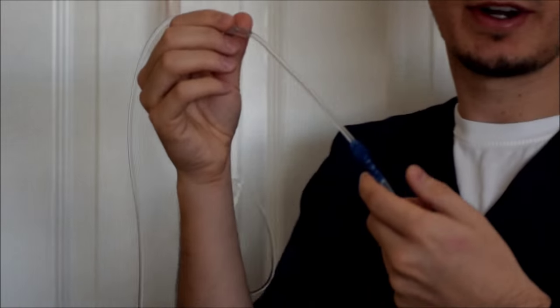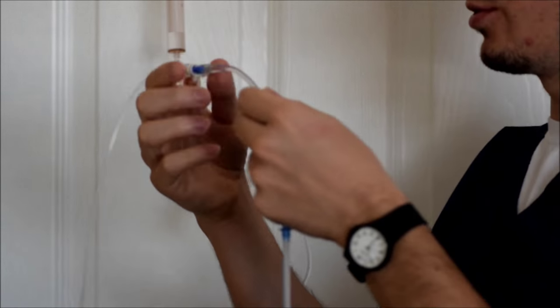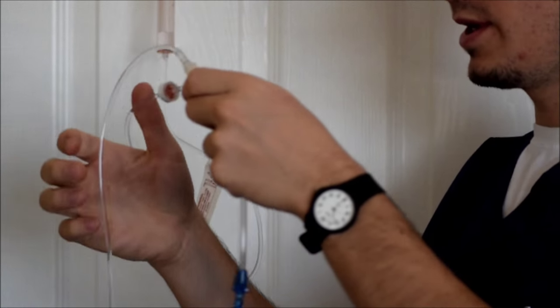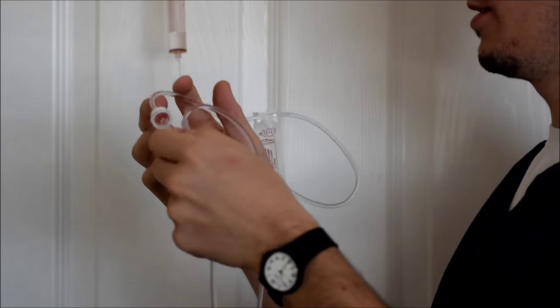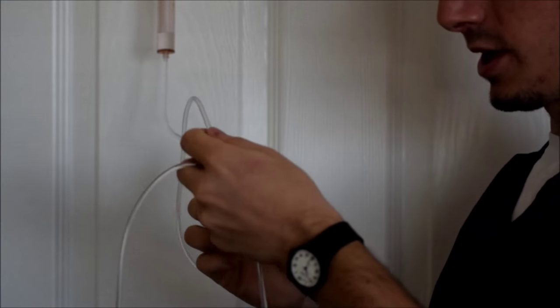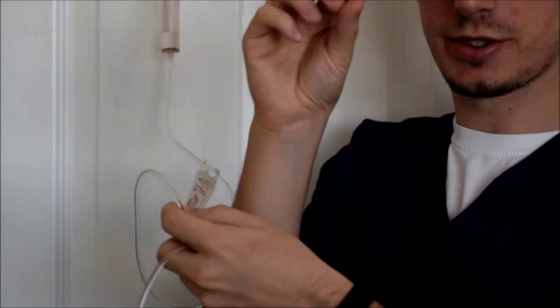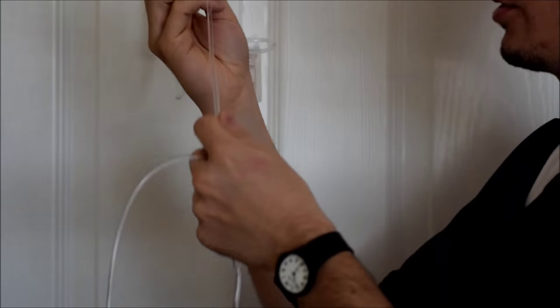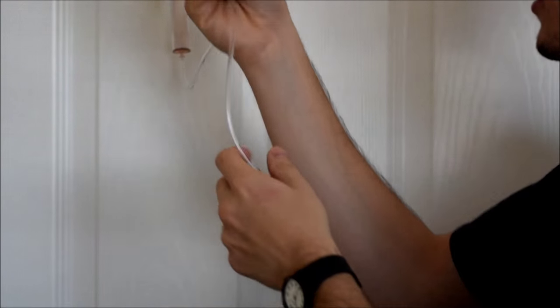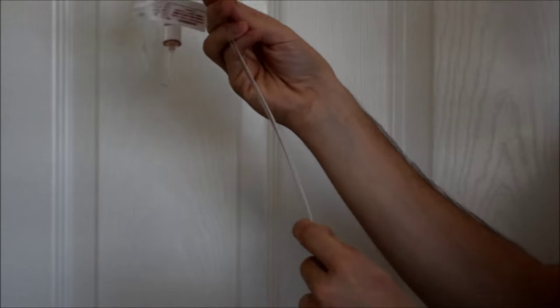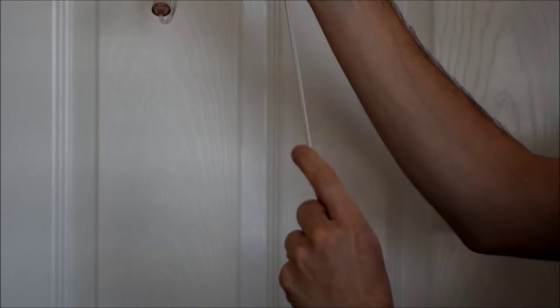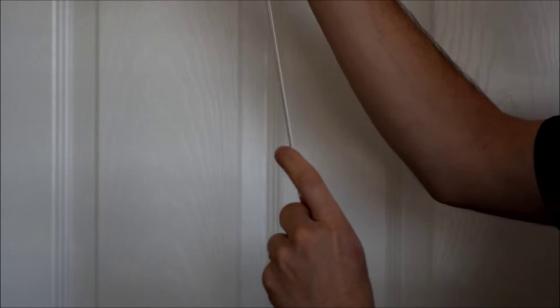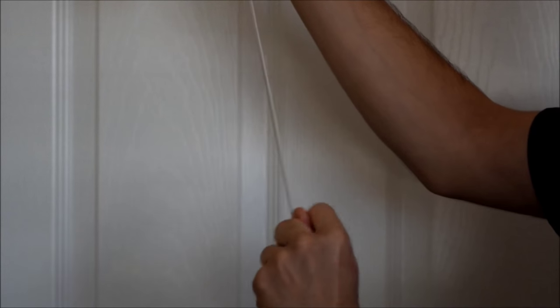So what would you do if you have air bubbles in your tubing? They're really a pain in the butt, but we get them all the time. Sometimes if they're small or big, all you can do is just basically have it go back up. So it's gravity. You're just gonna stretch out as far as you can and just fling all your air bubbles up.